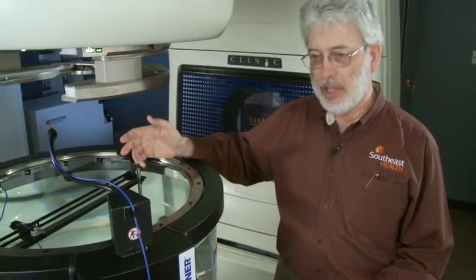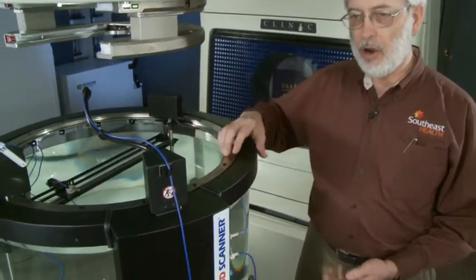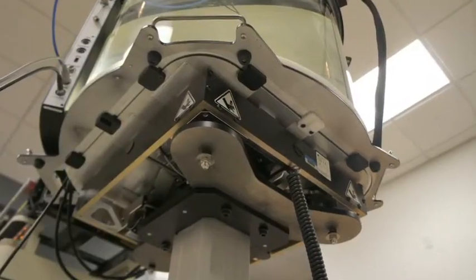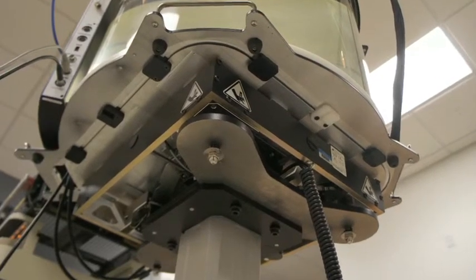It's because of auto setup that we're able to roll the scanner into the room and in less than an hour be scanning. Now the key to the auto setup are the leveling motors and positioning motors that are in the base that the tank sits on.